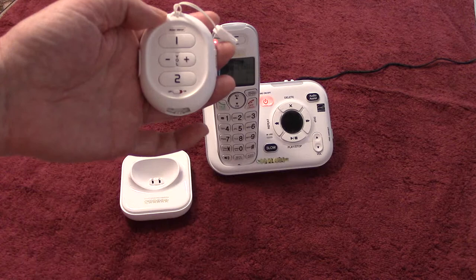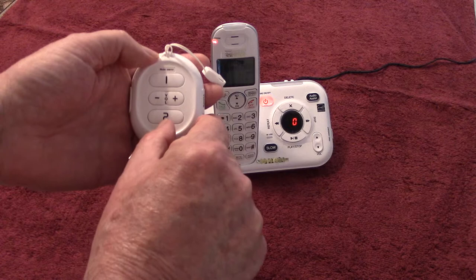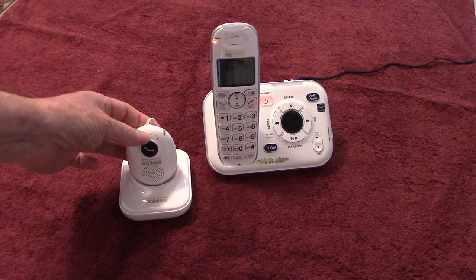If you chose to go on a vacation and you're not going to be in town for a while, you may want to take your pendant and turn it to the off position by sliding the switch to the left. When you do, you've turned off the pendant and therefore reduced the consumption of battery power.